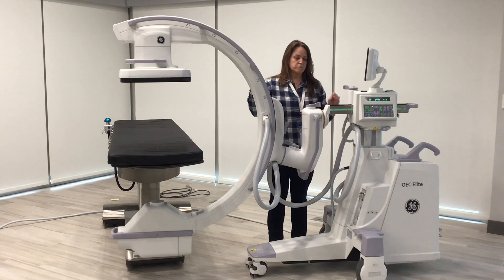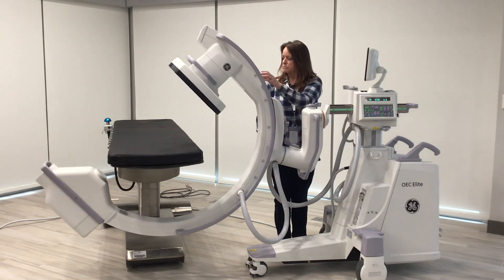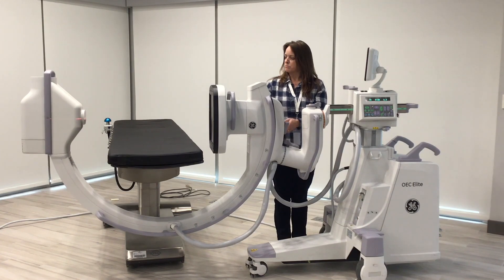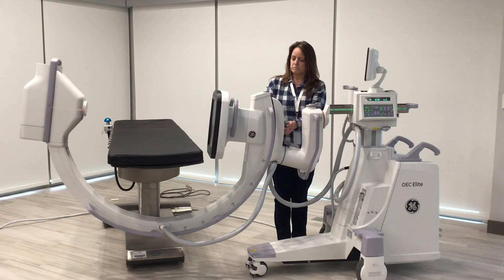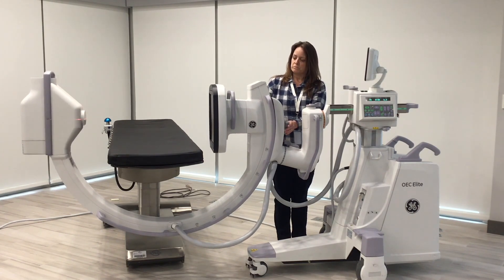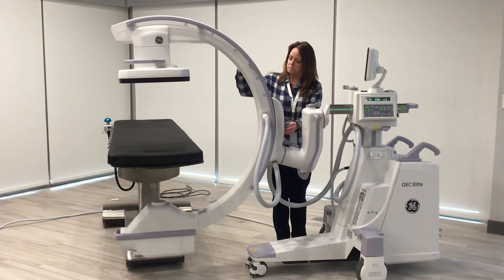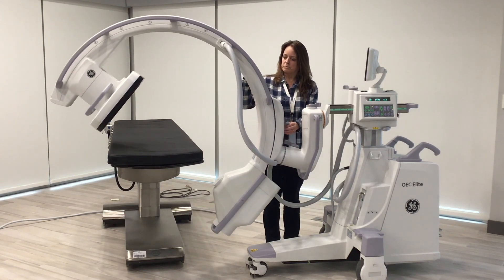One of the other big positions we talked about earlier is going to a lateral position. As you see, as the C-arm positions around the table, you do not have to worry about the x-ray tube or the detector hitting the patient or the table. This goes to a 90-degree view lateral — you can even go to 95 degrees, giving you that little extra 5 degrees of flexibility. Then we go back to an AP view and move over to 55 degrees of over-scan. As you notice, we have 55 degrees over with no contact with the patient or the table.